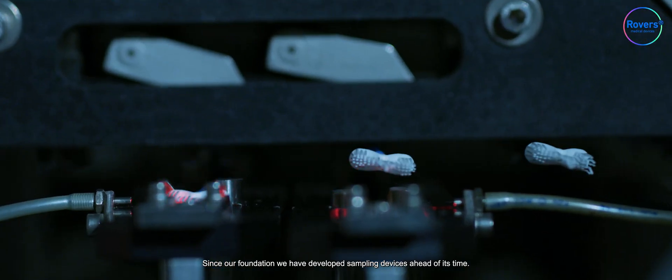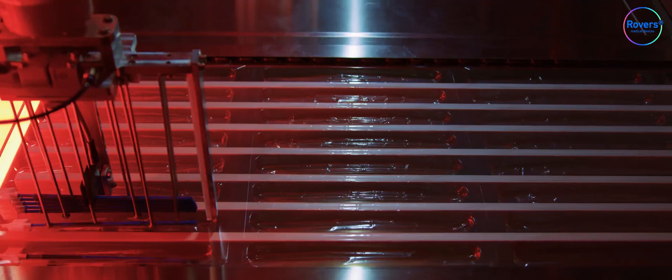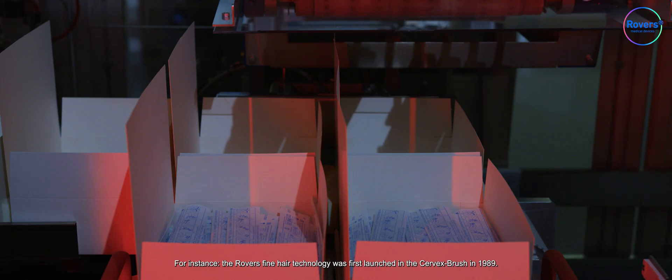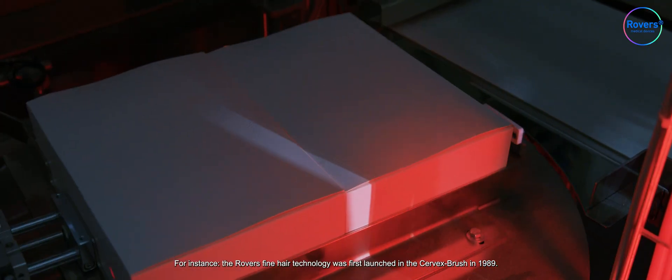Since our foundation, we have developed sampling devices ahead of its time. For instance, the Rovers Fine Hair Technology was first launched in the Cervex Brush in 1989.